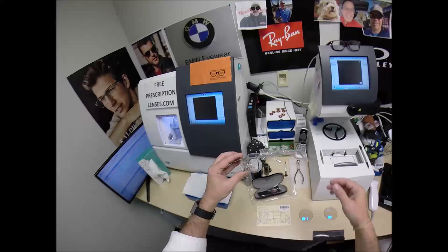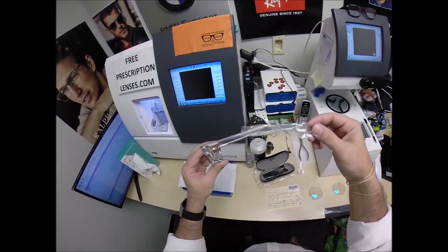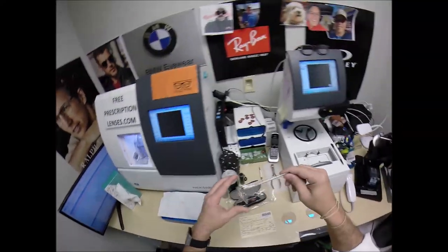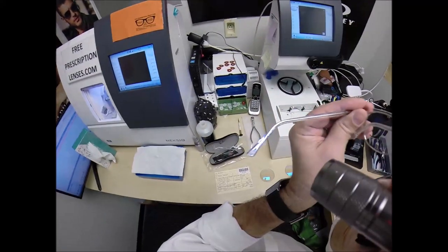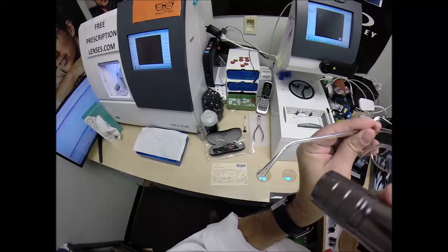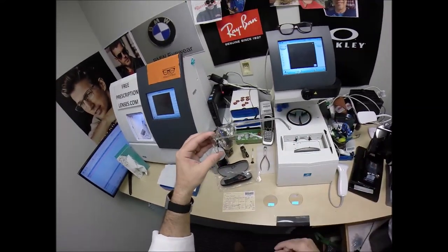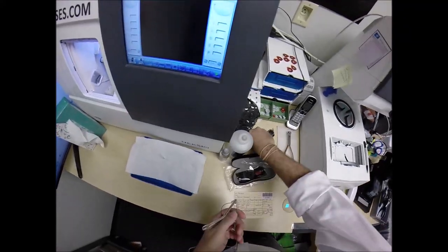So let's make everything perfect for Brian. Of course, it comes with a little plastic sleeve on the left temple, and I'm going to put that on there when I ship to him. This is the Ray-Ban 5154, color 2001 in the 51 eye size — this is the crystal silver. It also comes in crystal gold. I'm going to pop out the original demo lenses.